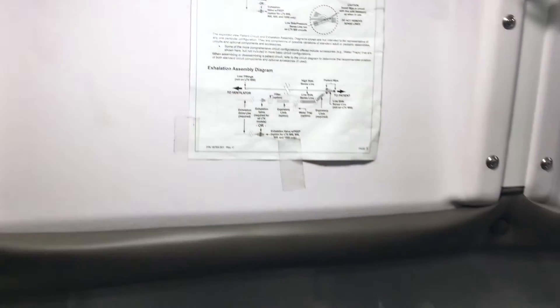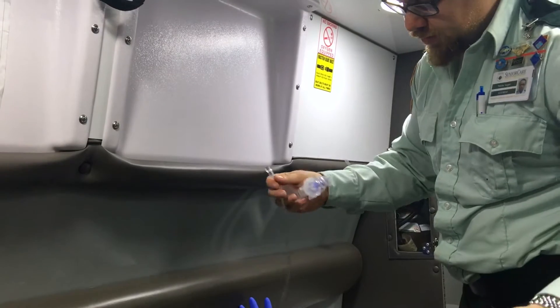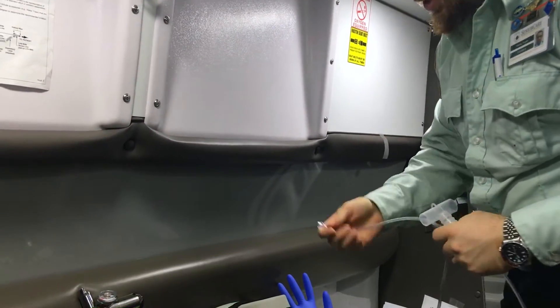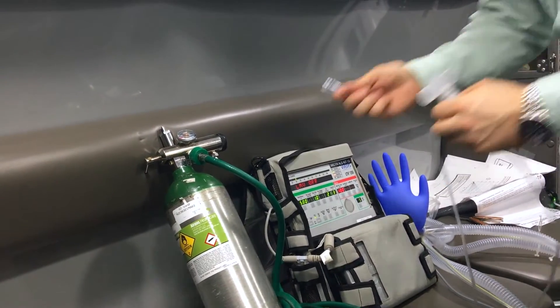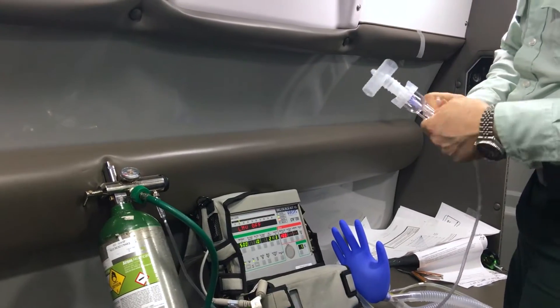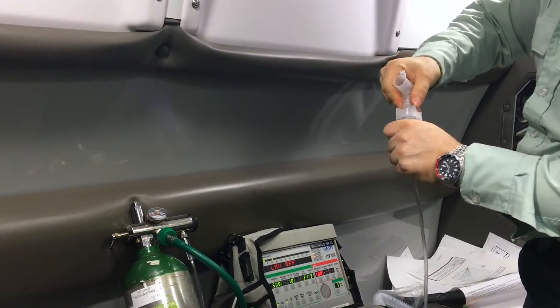You're going to take out your nebulizer. You have your T-piece connection here and your tubing here, so you're going to connect it here. Even if the patient has oxygen on the 50 psi port, you can still utilize this port for your nebulizer. This is your connection. You took your albuterol, your ipratropium — the combination treatment. You open this up, put your medication in, and close it.